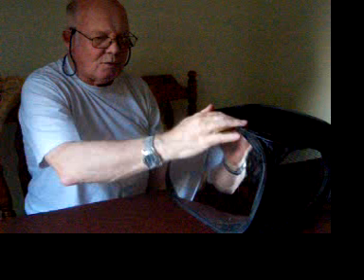That's basically the exercise. The scientists who introduced us to this said there's roughly a fifty percent success rate for establishing some movement in the affected side. I'm in Hampshire at the moment but I'm about to go up to South Yorkshire, and I shall take this with me so I can do the exercises when I'm away. When I finish with the exercises, just push it down one-handed and it folds up quite easily, just like that.